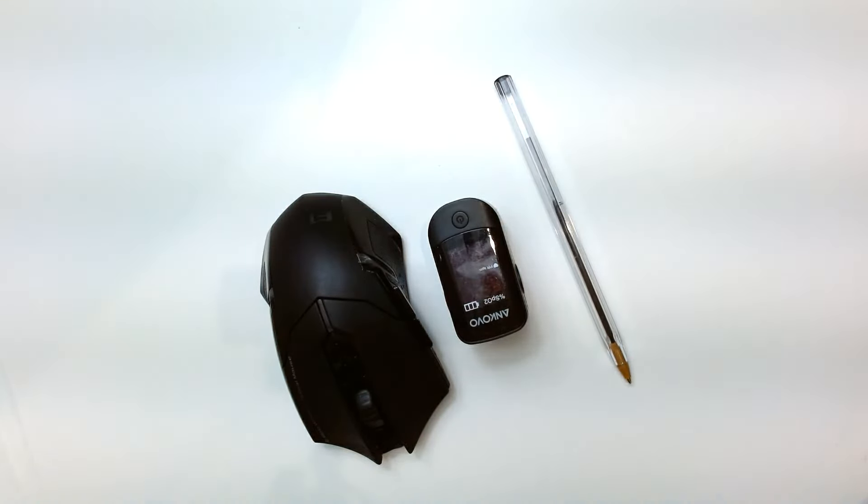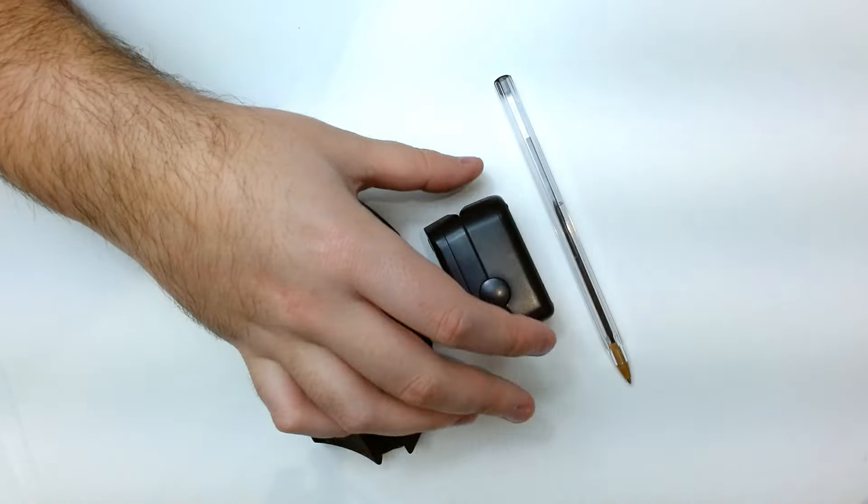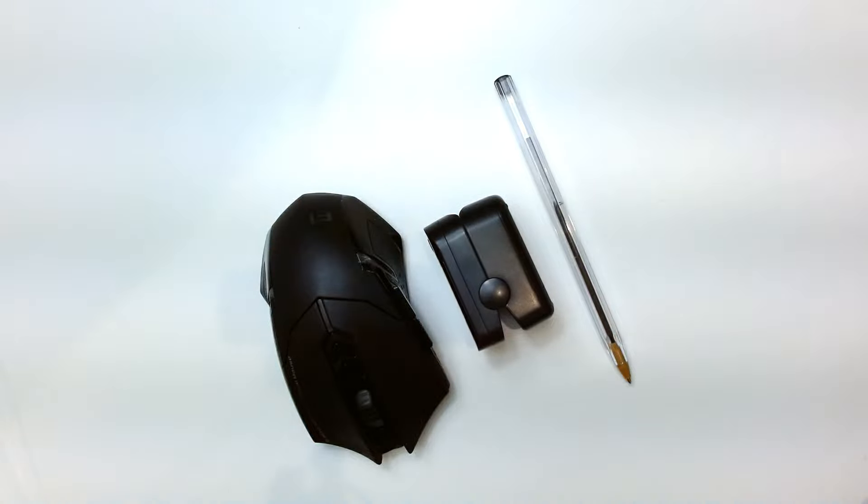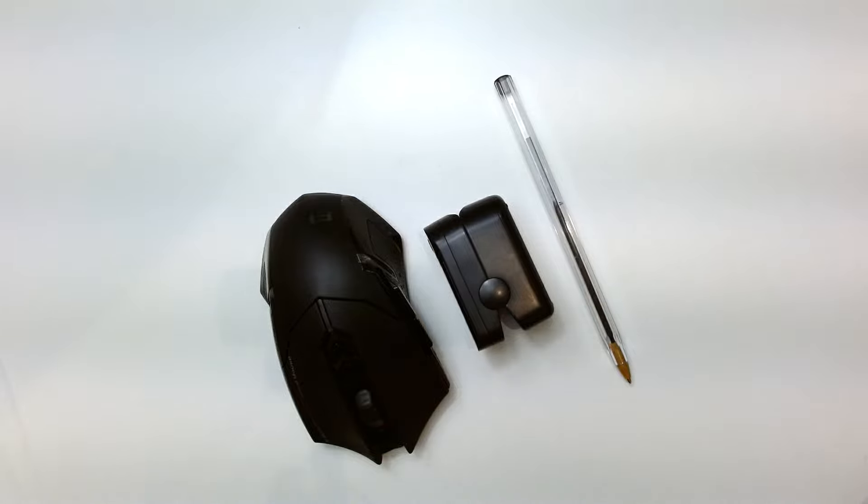So it's not too chunky, I'll turn it on the side for you so you can see. It fits in your pocket. It leaves a little bit of a lump but not much at all but overall it's a really nifty device.